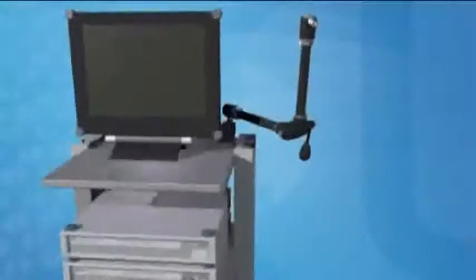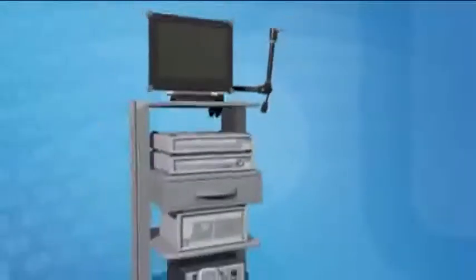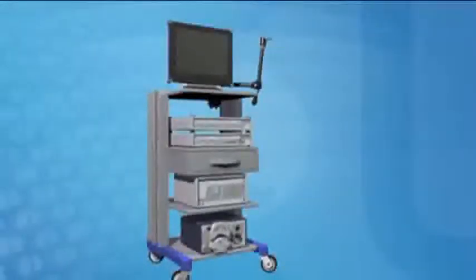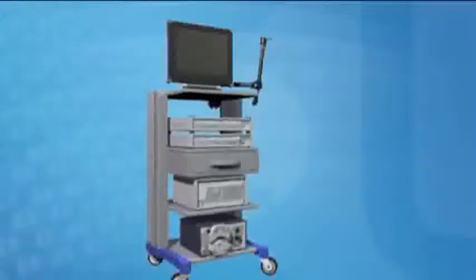The Polyscope catheter system adapts to your current video tower, so there's no need to purchase expensive capital components.